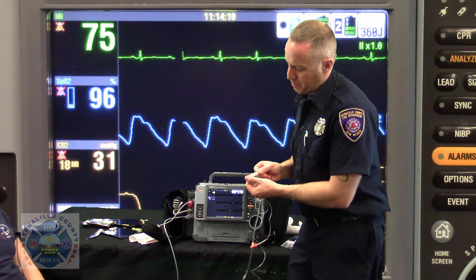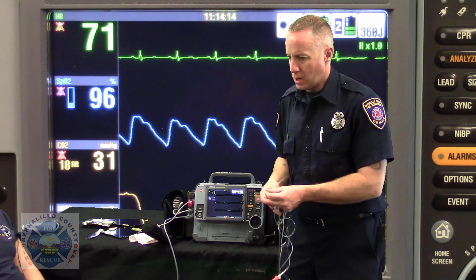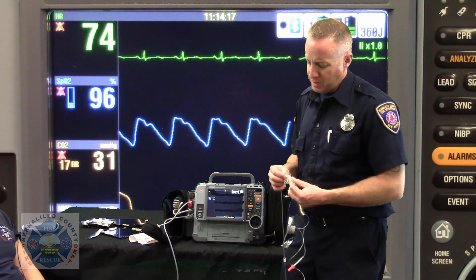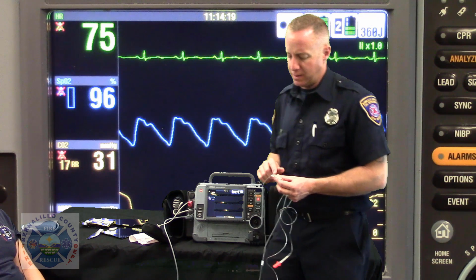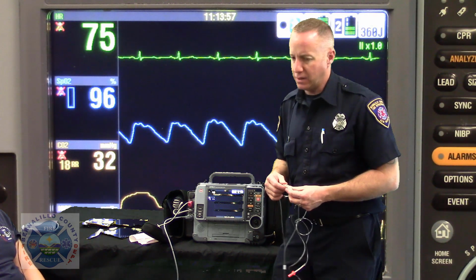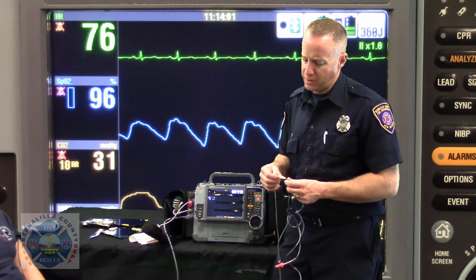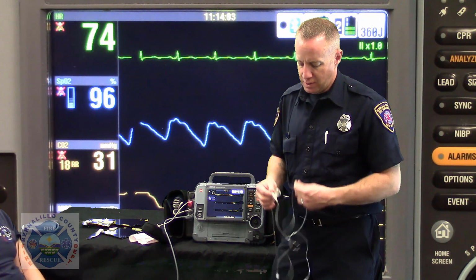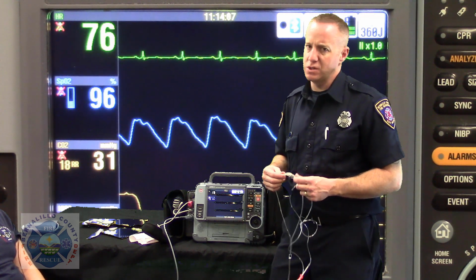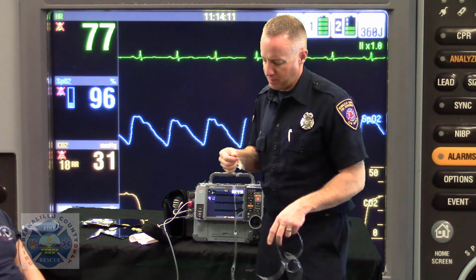You'll notice the diameter of the nasal prongs is much smaller than that of the traditional nasal cannula for adults that you see. That's a limiting factor for you to keep in mind: for high flow nasal cannula applications, this wouldn't be something you would use. We don't do high flow nasal cannula necessarily in our system, but if you're going to pre-oxygenate somebody that you're about to snow for intubation, you wouldn't be able to do that with this nasal cannula, so keep that in mind.